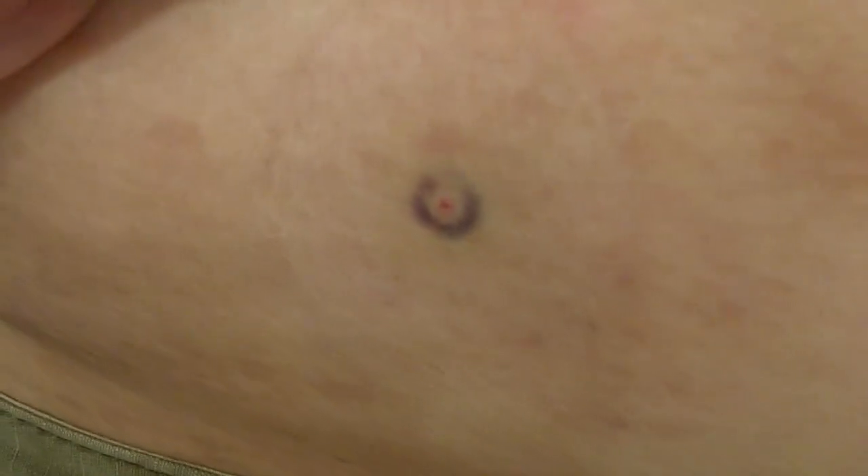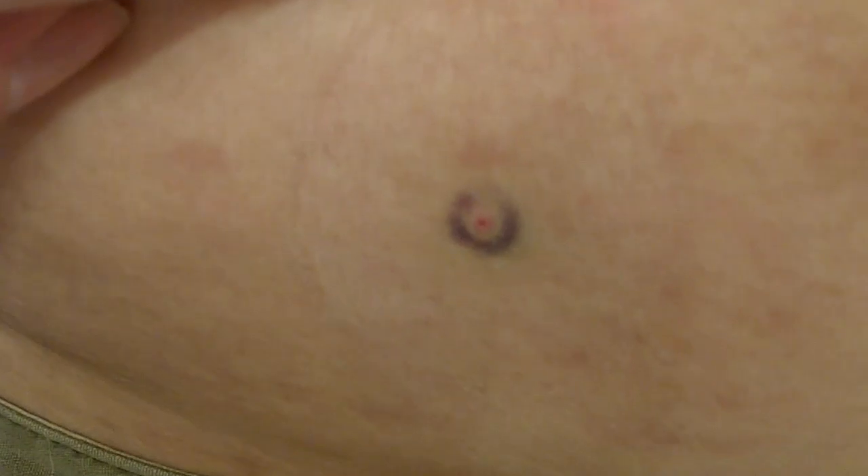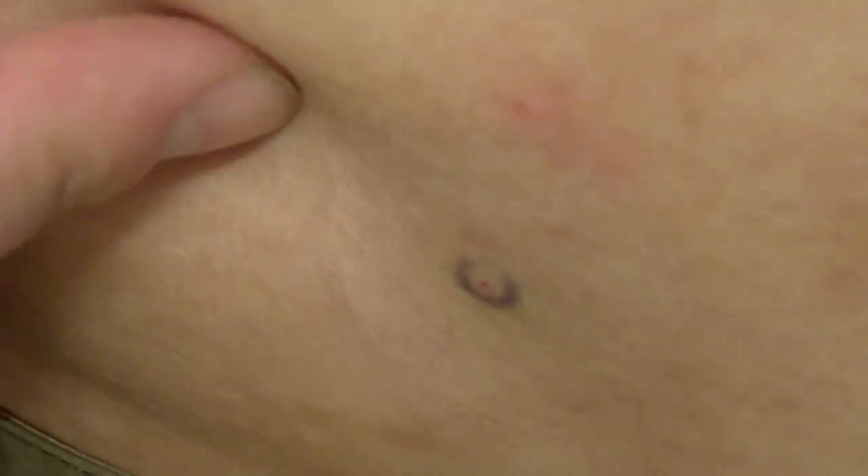So, the thing it left is a little bruise — a circular bruise. Not too sure what that's from. I'll find out. Outside of that, everything looks pretty good. No rash on the adhesive area, and that's pretty nice. Sorry about the no sound on the previous section of the video — I forgot to plug in the microphone. Anyways, so that's what that is.